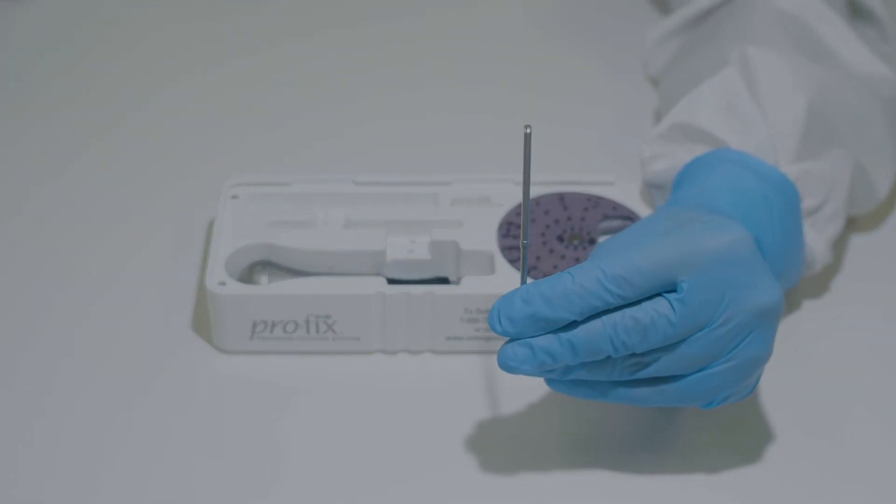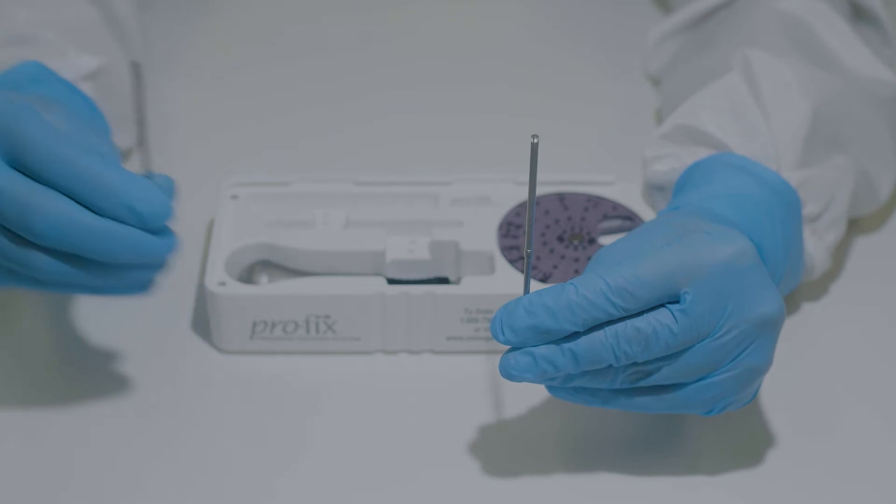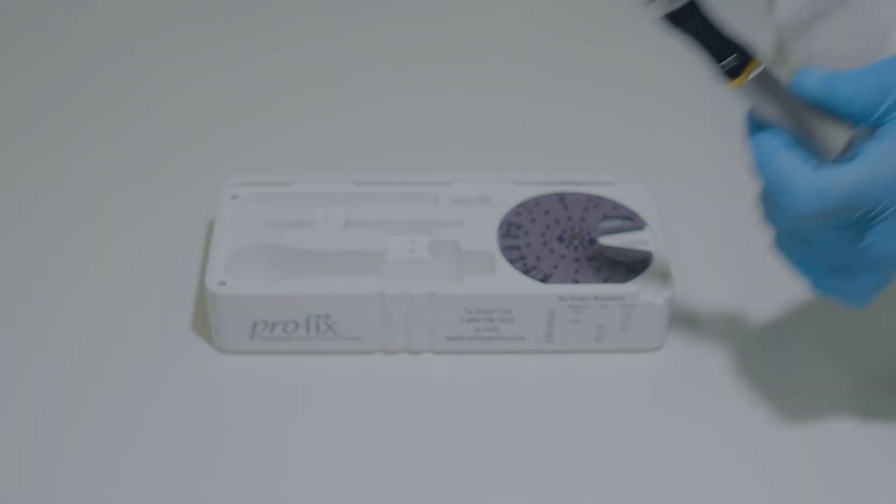This kit includes a 76mm blade, a 56mm blade, as well as the driver handle.